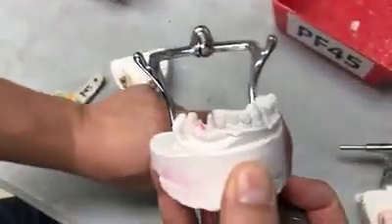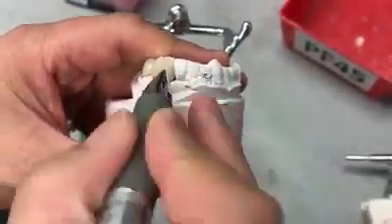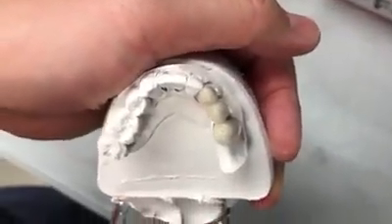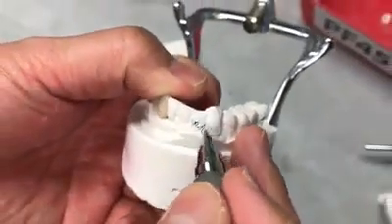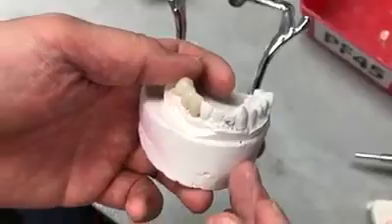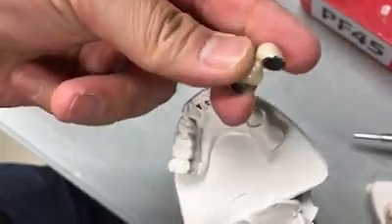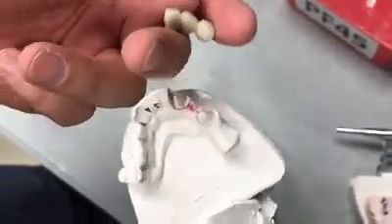Then I know the size of the tooth, how much is flat here — that's the contour, I call it. So technicians have to grind all the time. If they have a bubble, then we follow the adjacent teeth, keep it the same. So this is a three-unit case, and then we check the margin — polished perfectly done — and then ready to go.